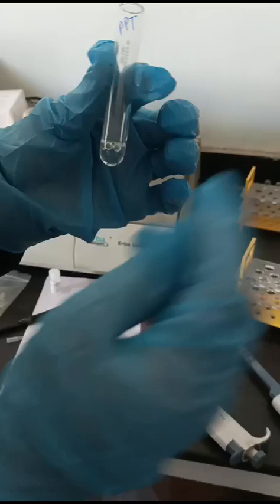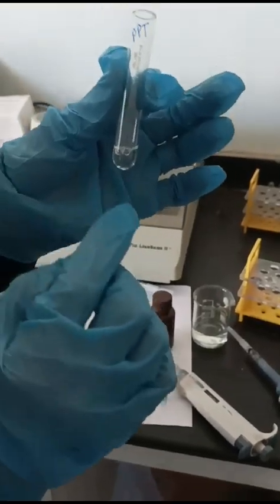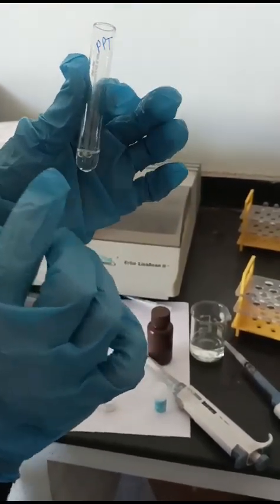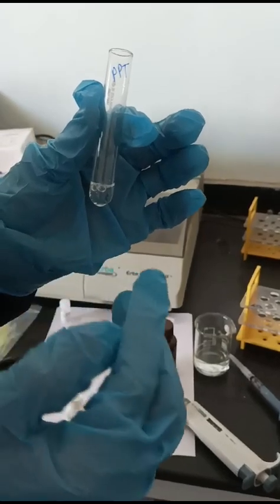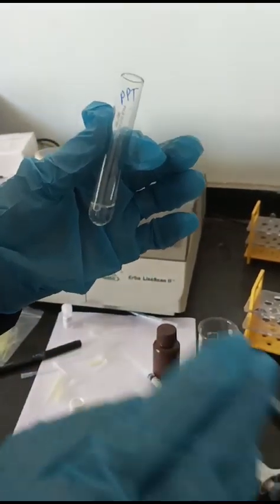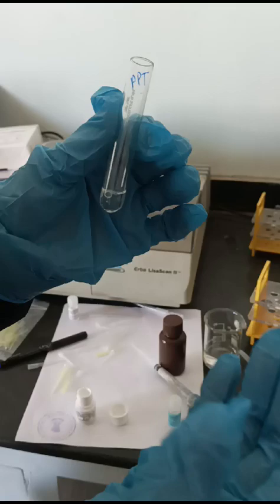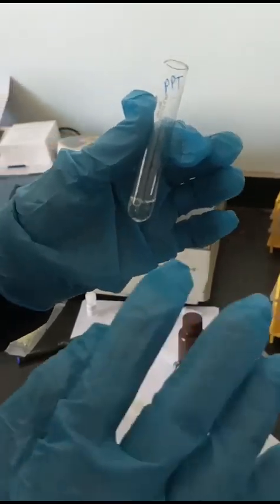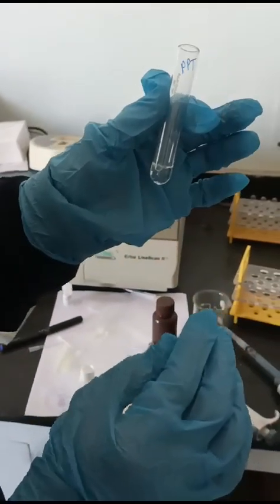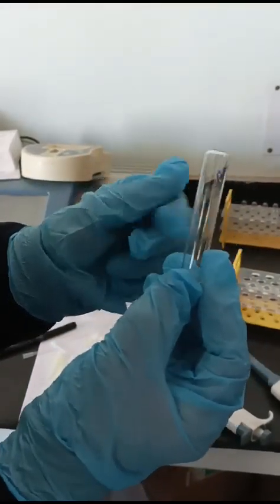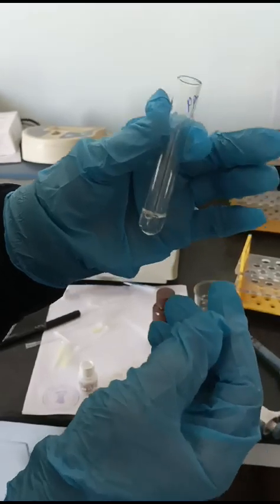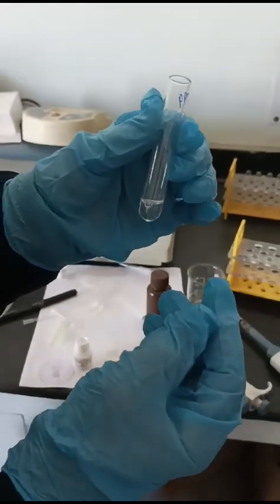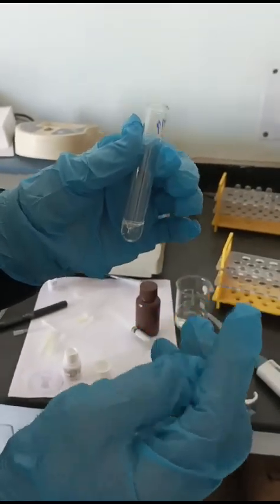This is the extra step for precipitation, where all the other cholesterol like LDL will be precipitated except HDL, which will remain. After mixing, keep it for five minutes incubating at room temperature or 37 degrees Celsius.